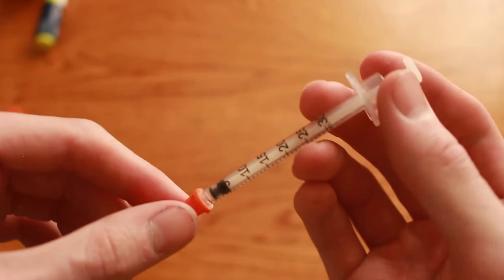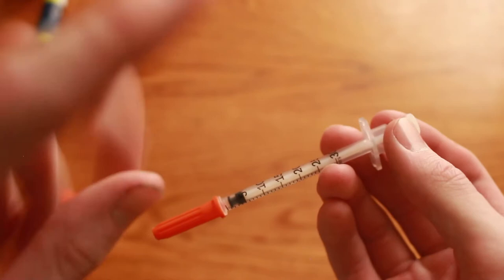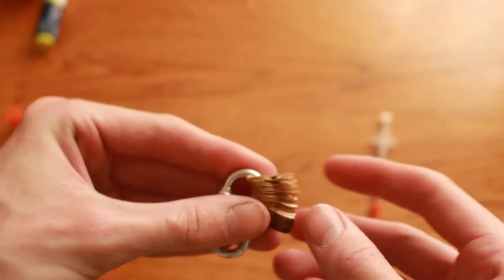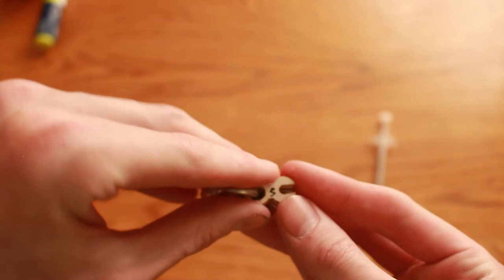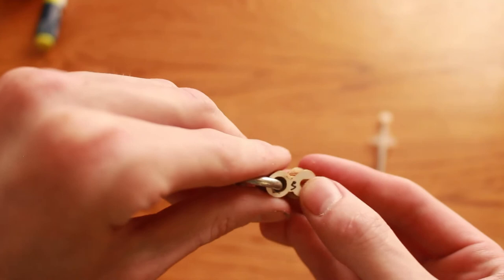So what can we do to reuse a syringe without needing to put it back in the vial and risking clouding up your insulin? Here's one solution. Here is the invention I'm talking about, just one that by the way I actually have more than one but we're focusing on this specific one.